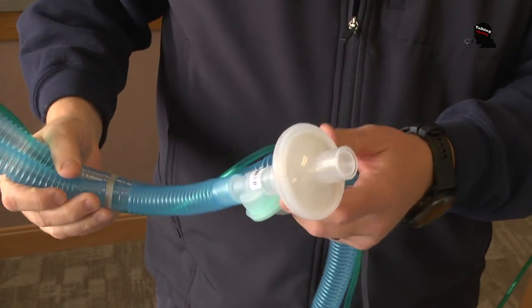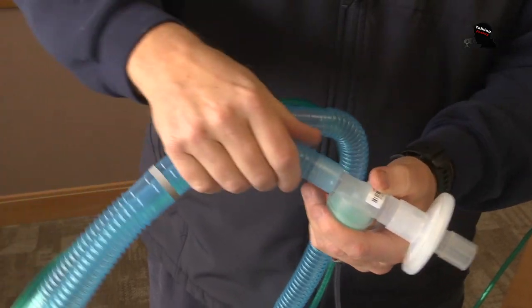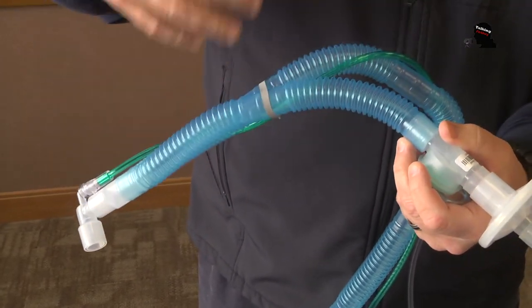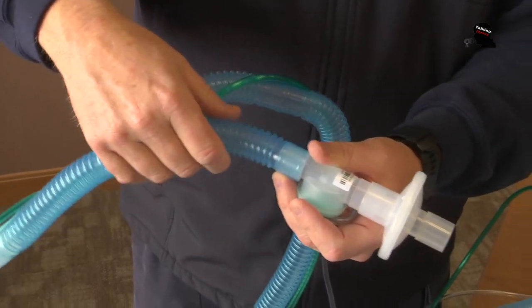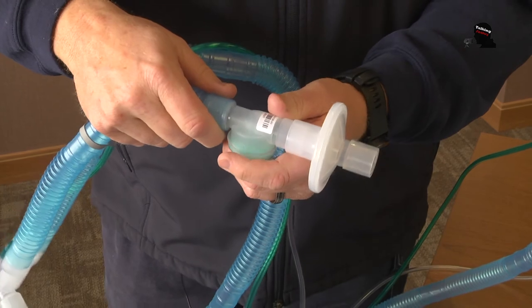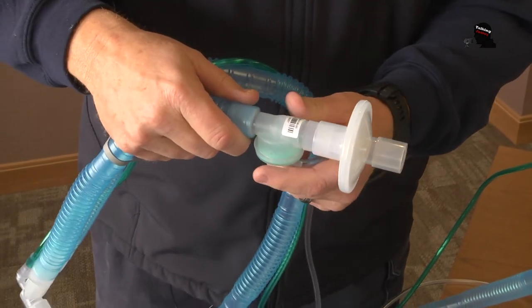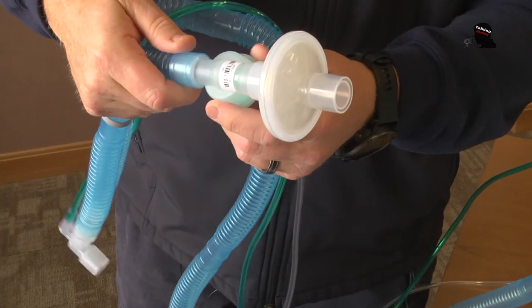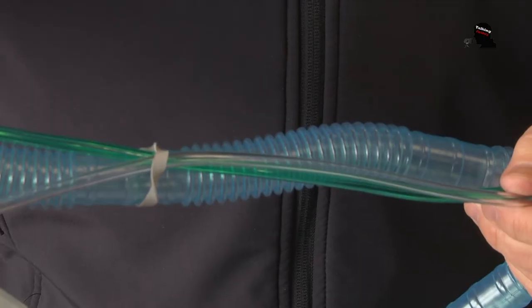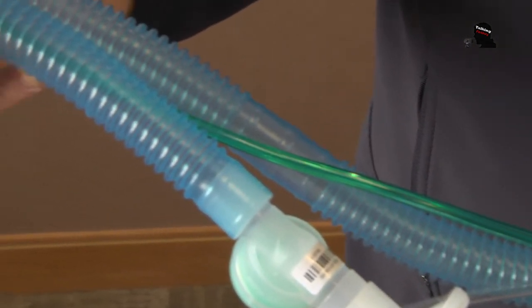The other part of the circuit does have a filter on the end. This short piece of tubing is where the patient exhales — their air comes out of here. Especially for patients that are really sick or may potentially have COVID-19, we want to filter that air. All of this is disposable, one-time use only, and then it's thrown away.